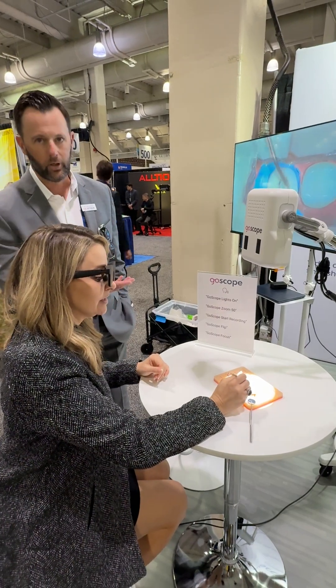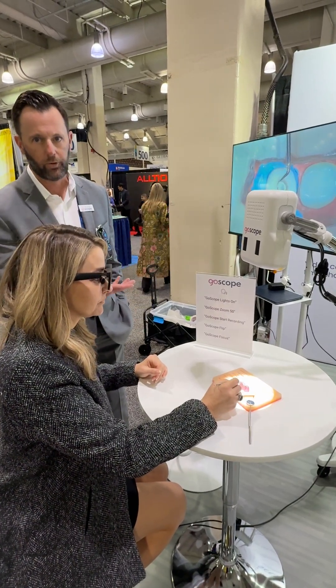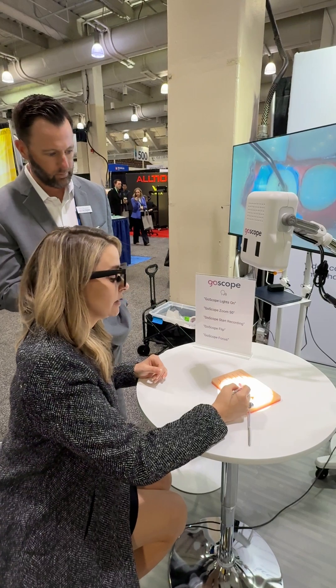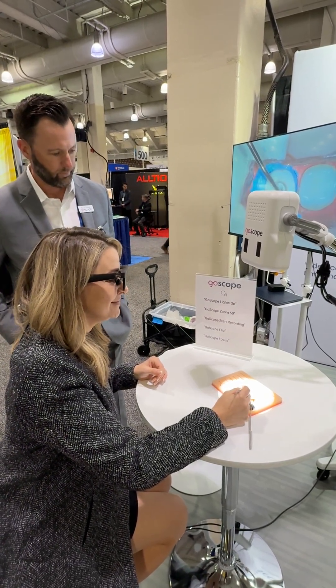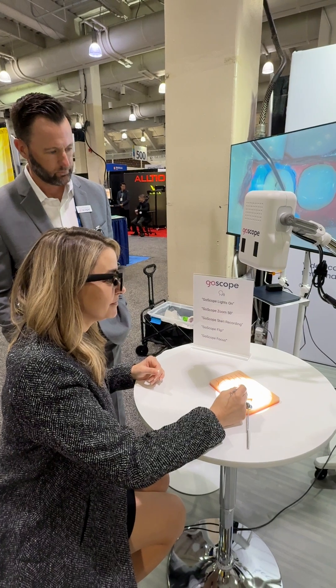Some simple commands that you can ask GoScope to do — GoScope is the wake word, just like Alexa. GoScope, lights on. GoScope, lights off. You can control the scope lighting entirely by voice.